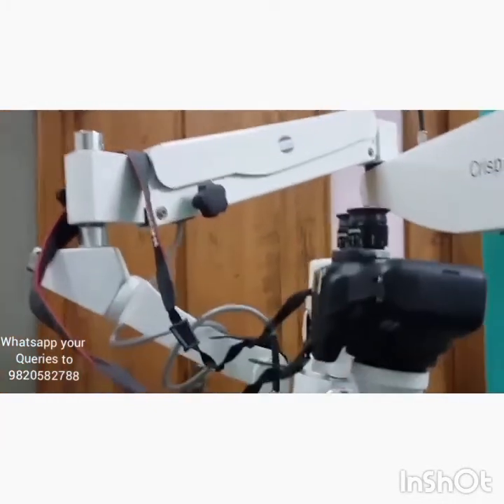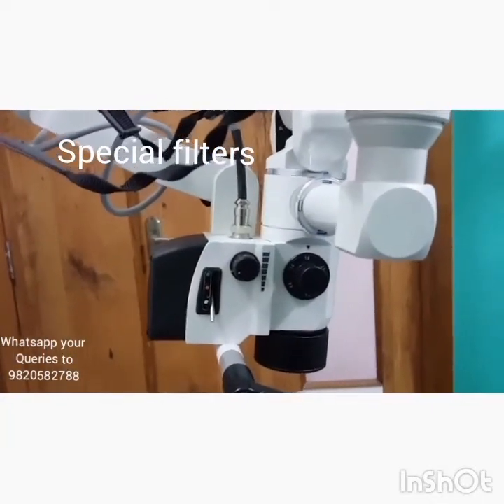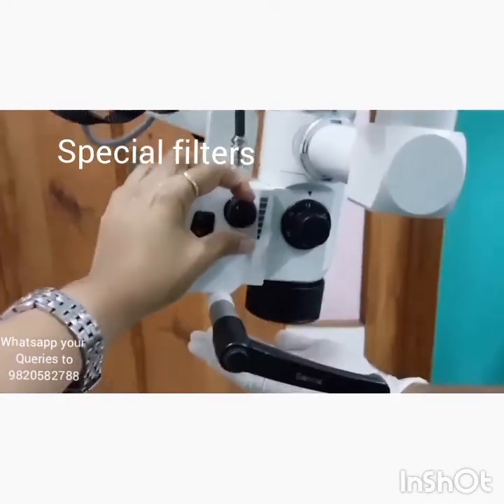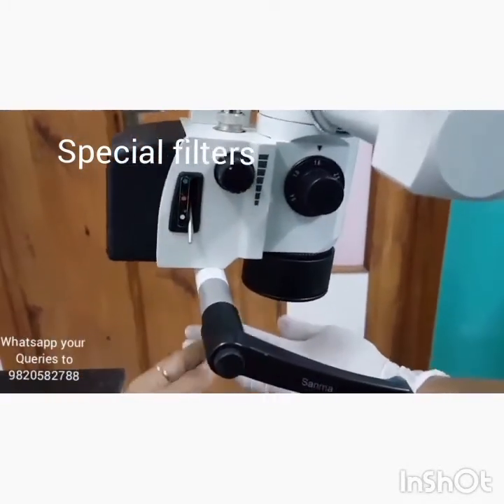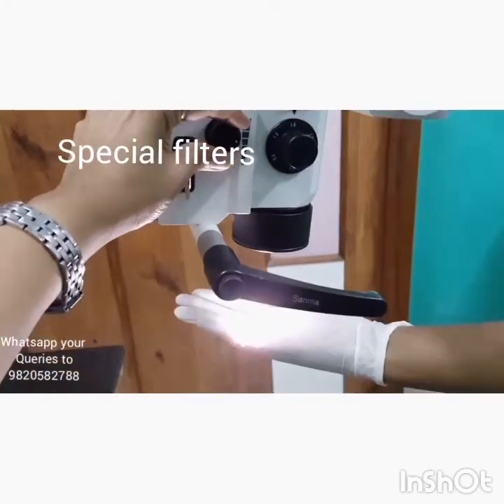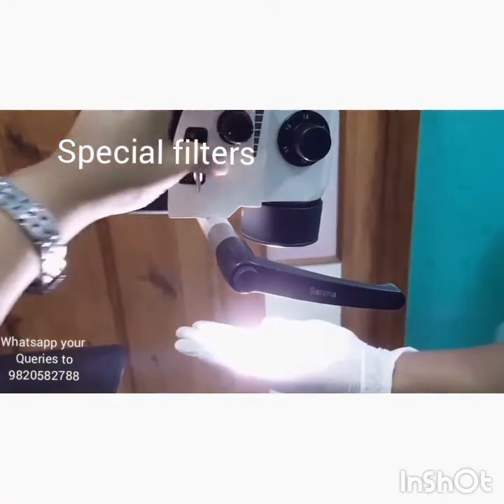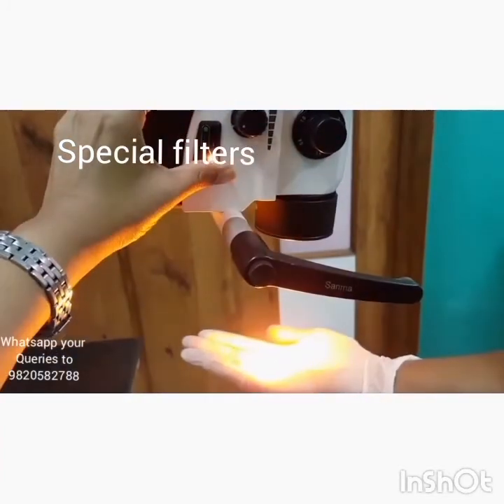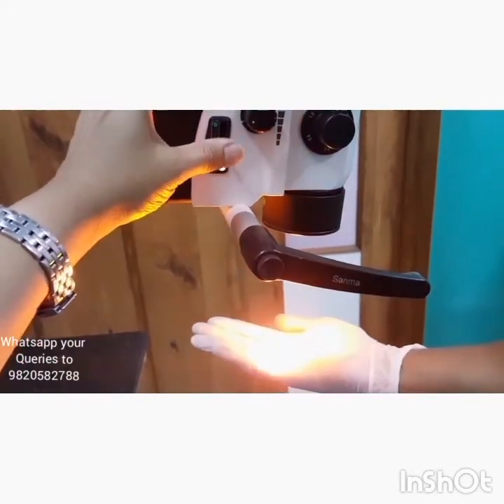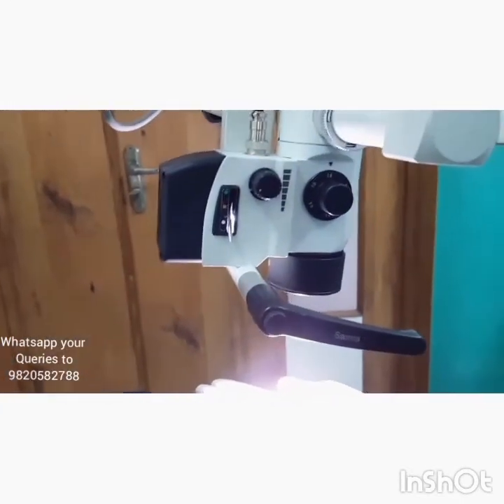The body of the microscope can have additional features. An essential feature is the adjustment of the intensity of light, as well as the provision of filters which can be used during various procedures. This sums up the components of the body of the microscope.